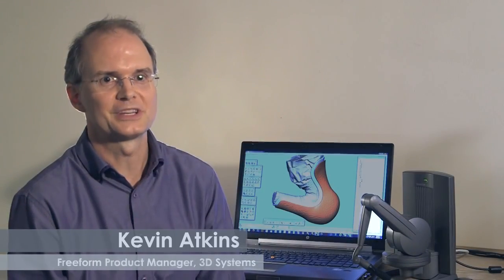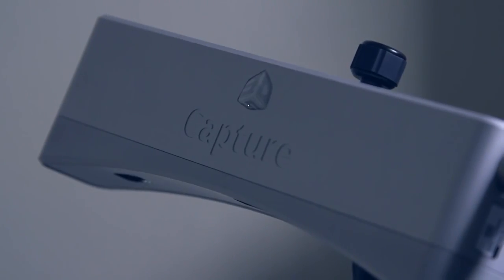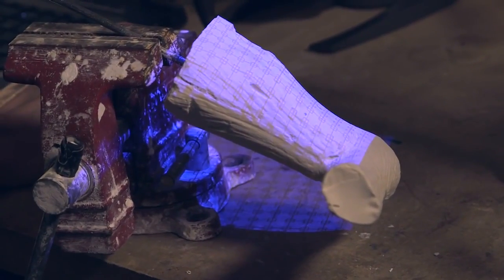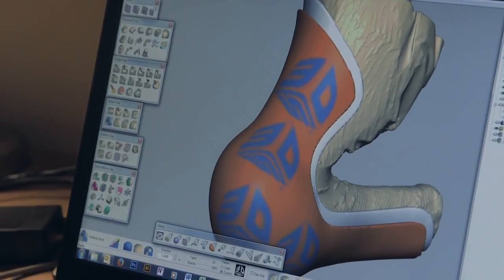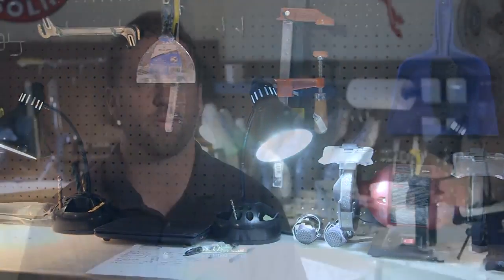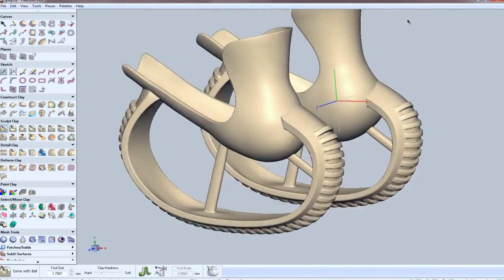For Derby's project we're using a variety of 3D technologies, and that allows us to get in there and really modify the organic digital models quickly and easily, and start to do the sort of designs that Derek wants us to do. The great thing about using 3D technology in Derby's case is having these images on file on a computer — being able to print them is a lot quicker than having to hand sculpt every single mold and rebuild these braces five or ten times.